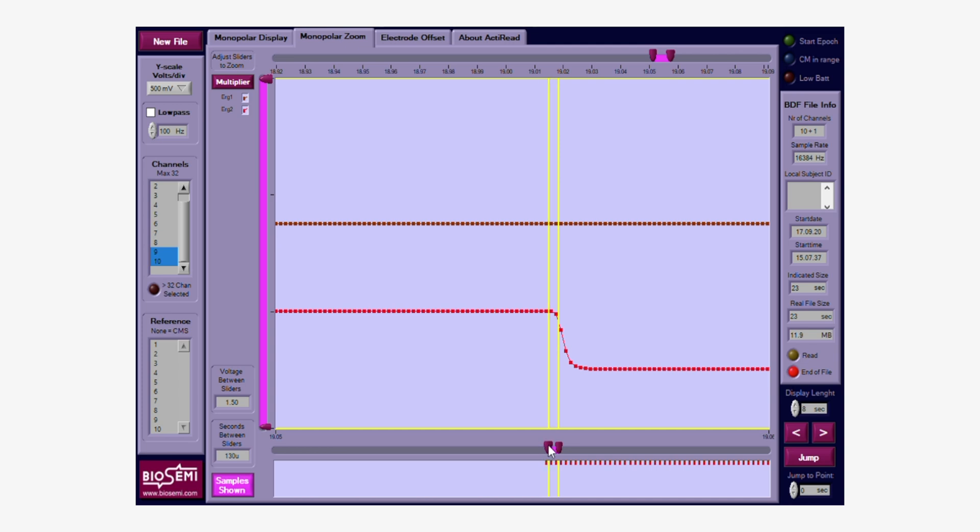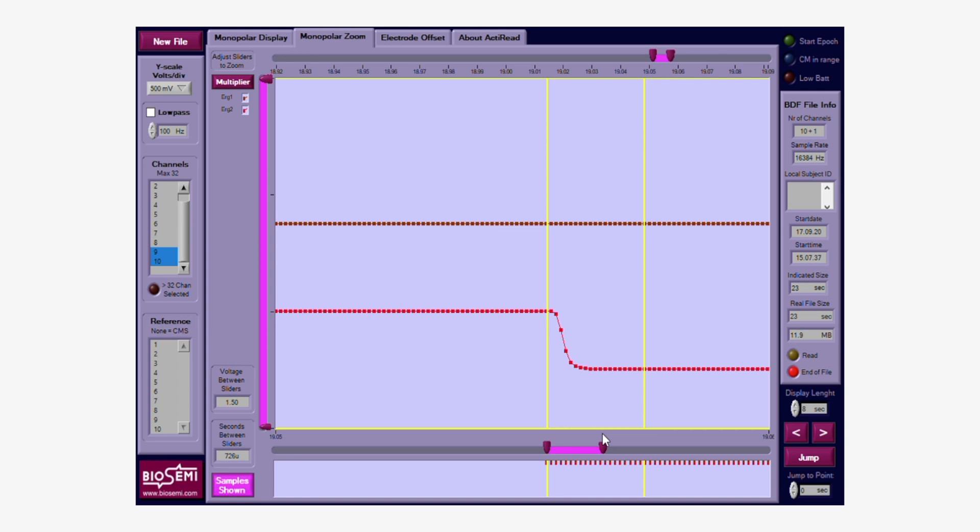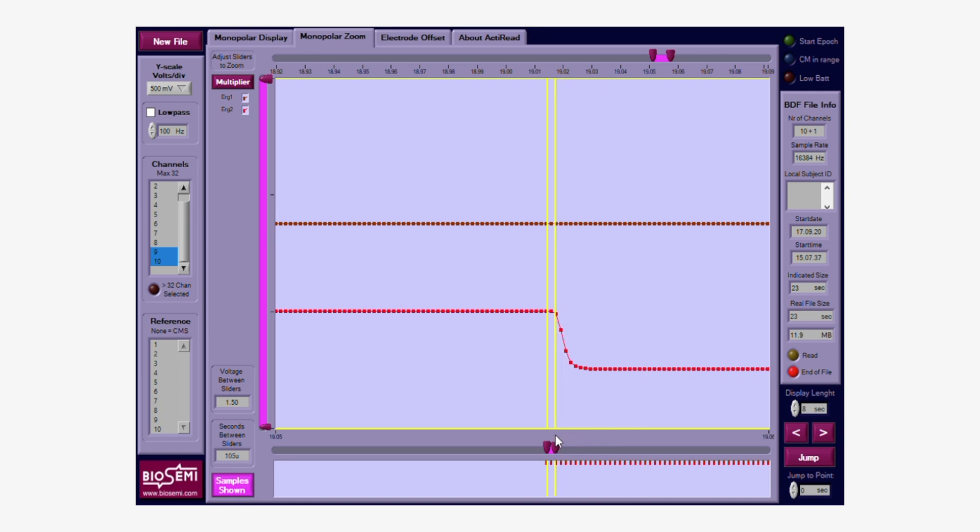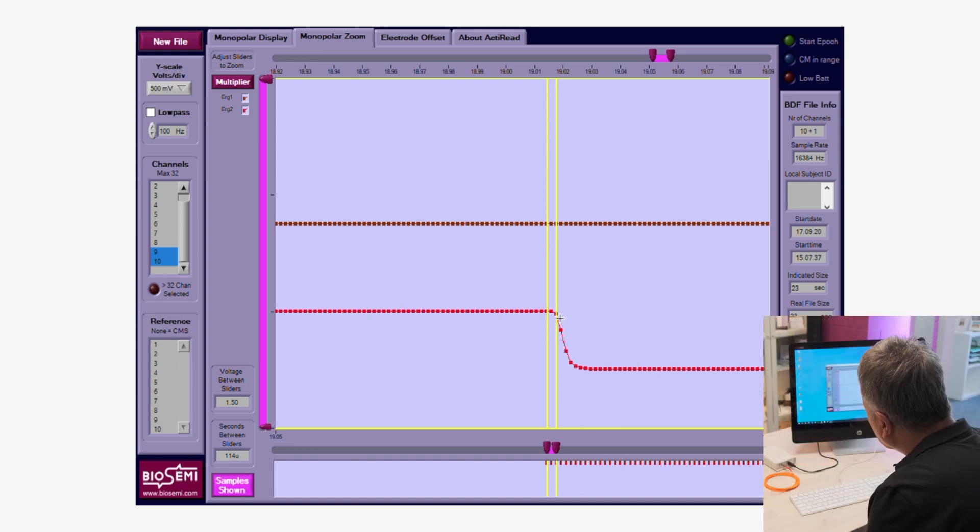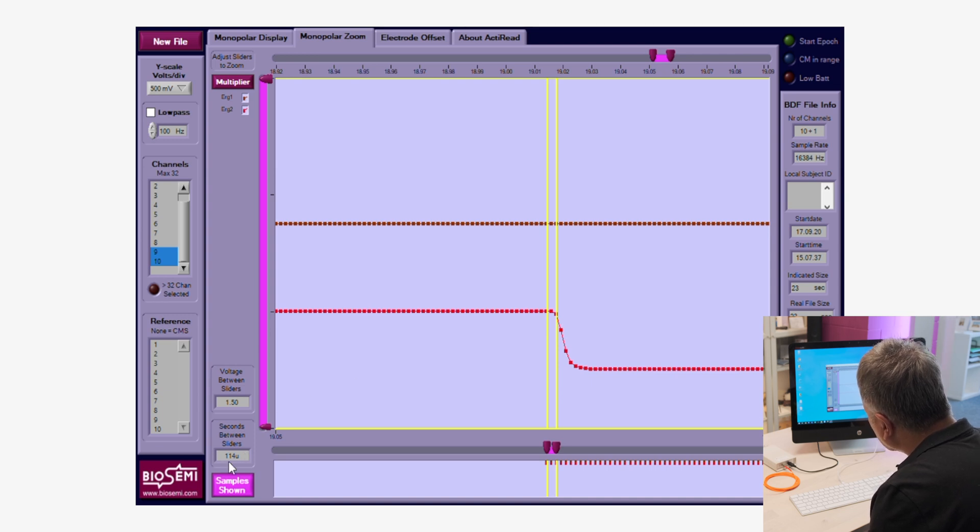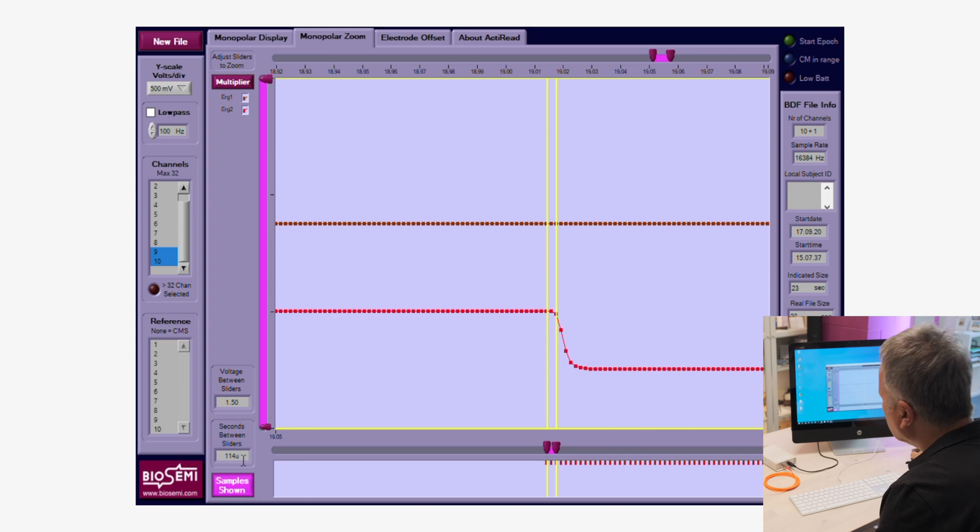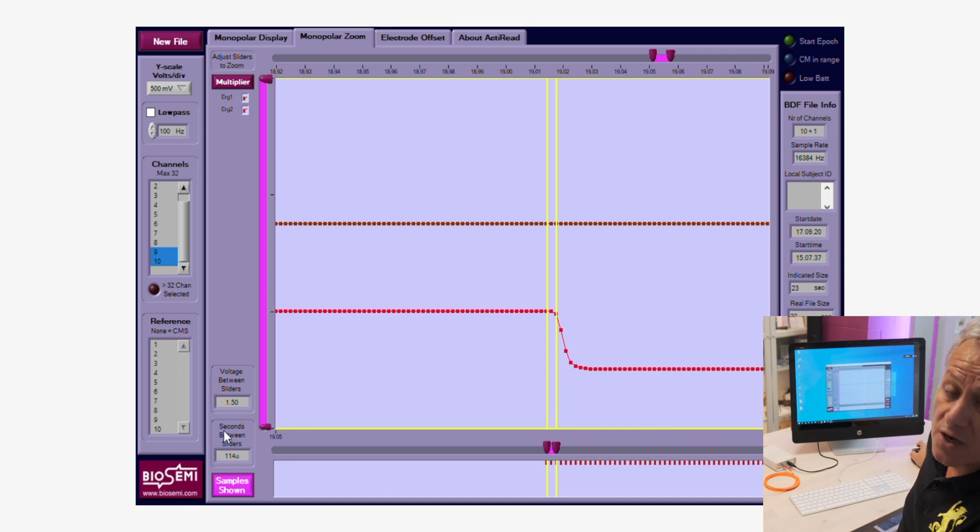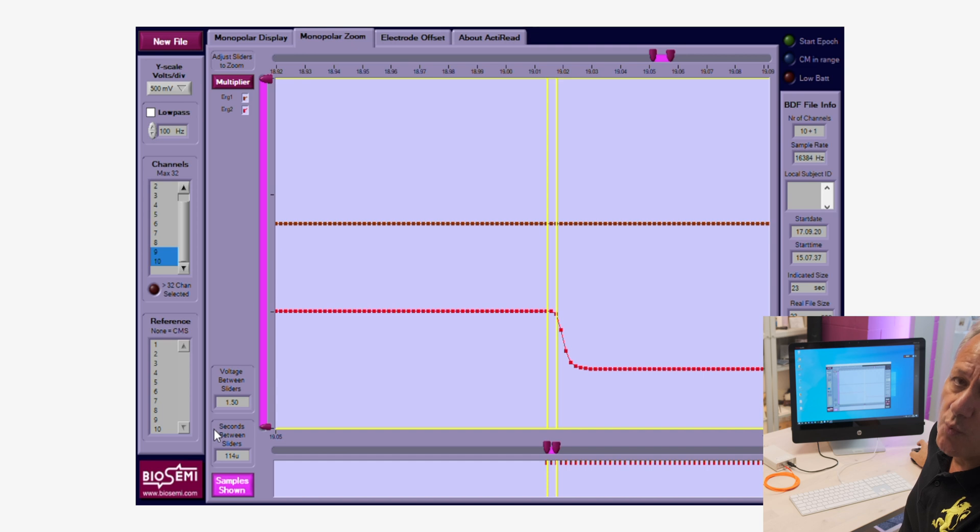Remember this again is time zero. And if there was a delay then this would be somewhere back here, but it's not. The first sample of the onset of the actual response is just about here. And when I let go of this, if you want to move it a little bit more just like here, so now the first sample is already falling—it's already decreasing to our 5 volt level. So when I look at the actual difference between the two markers here, we're measuring 114 microseconds. That is 0.114 millisecond.